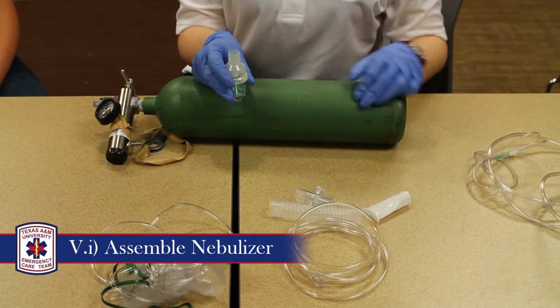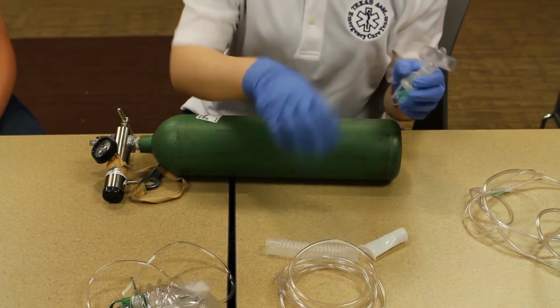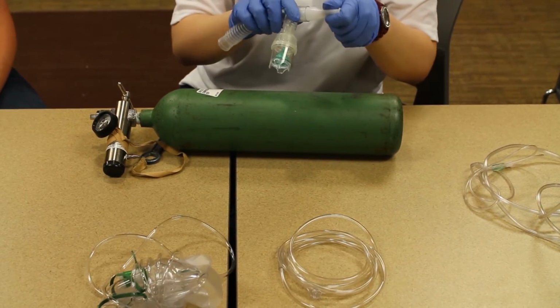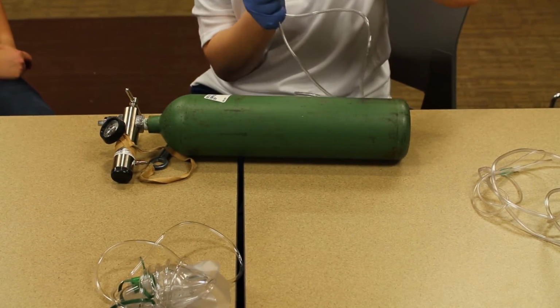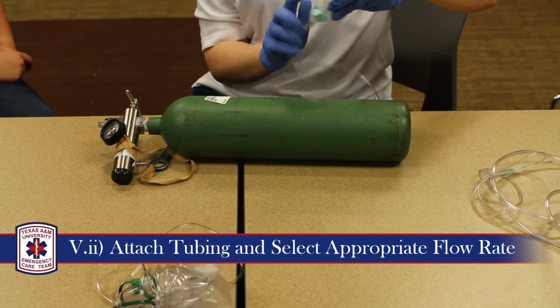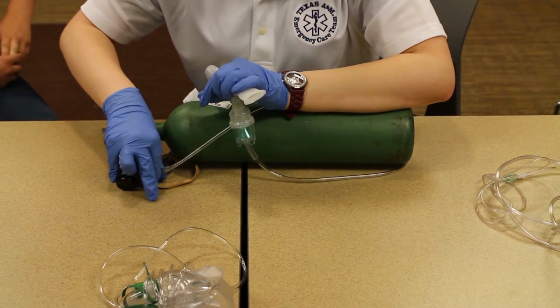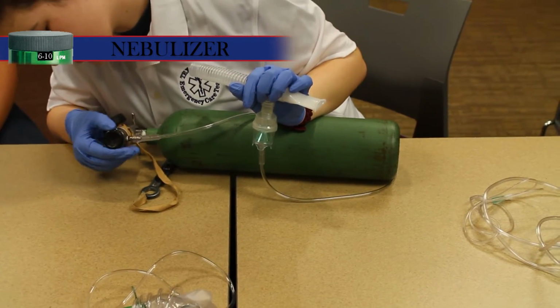Next, we will take a look at the nebulizer, which is commonly used to administer medications such as DuoNeb. To begin, assemble the nebulizer, taking note that parts can only fit one way. Attach the tubing to the regulator and the nebulizer, and select the appropriate flow rate. For the nebulizer, the appropriate flow rate is from 6 to 10 liters per minute.